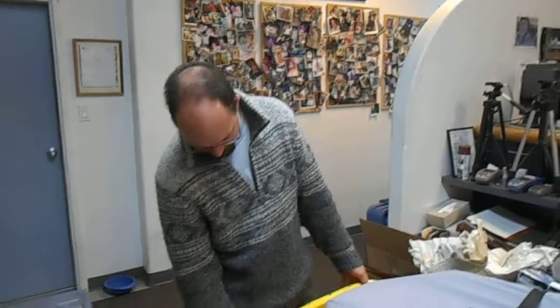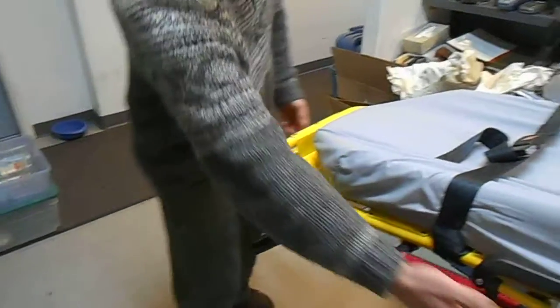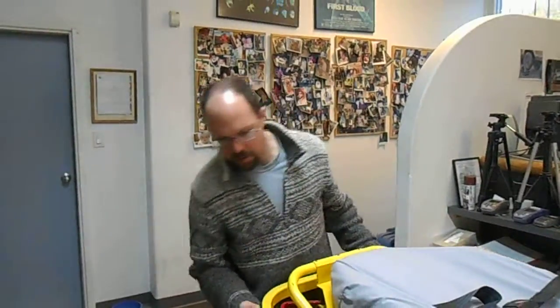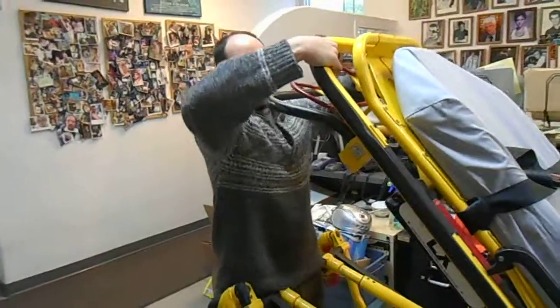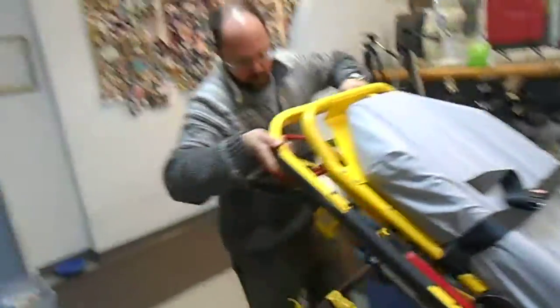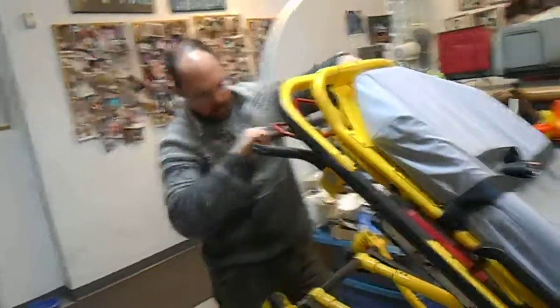There is a red handle here at midway to raise and lower the gurney. The weight must be off the gurney — lift it or what have you. Pull the handle lower and lock it in place. Pull the handle and lift up.